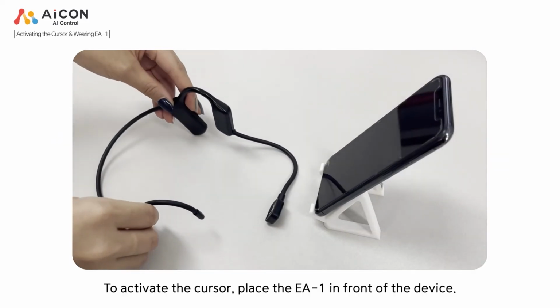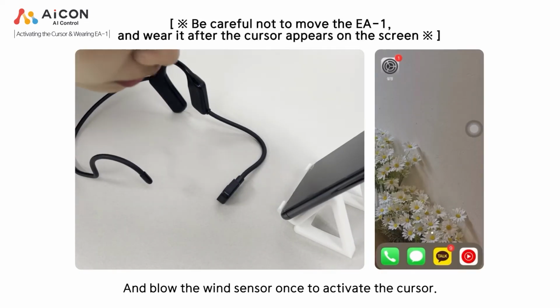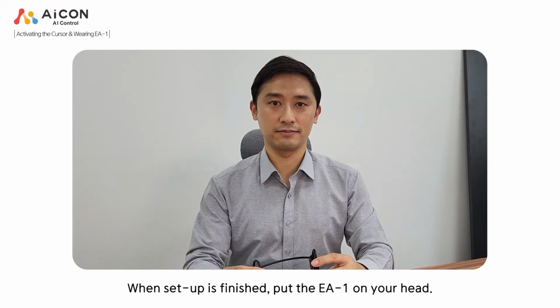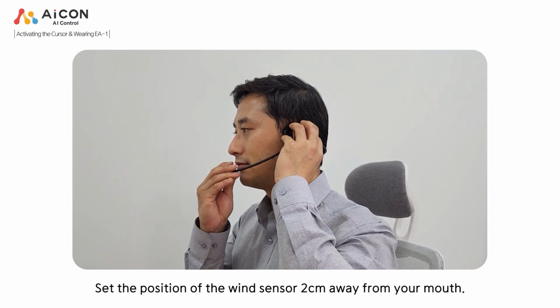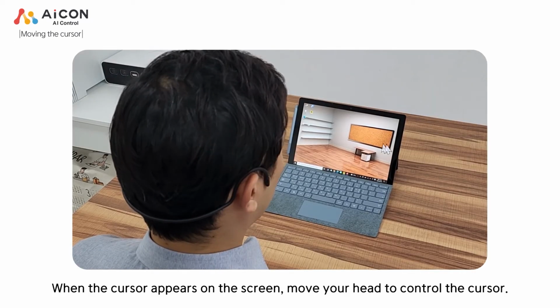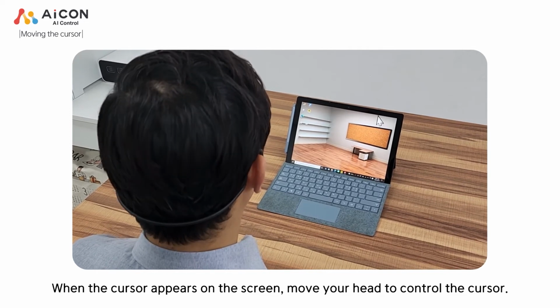To activate the cursor, place the EA-1 in front of the device and blow the wind sensor once to activate the cursor. When setup is finished, put the EA-1 on your head. Set the position of the wind sensor 2 centimeters away from your mouth. When the cursor appears on the screen, move your head to control the cursor.